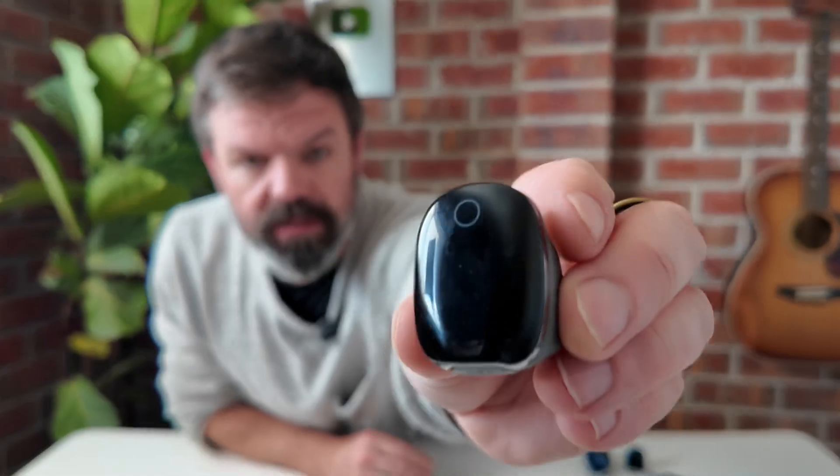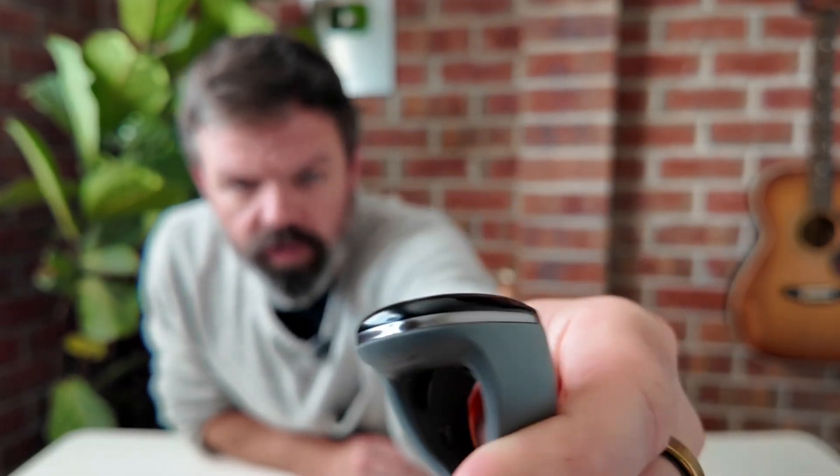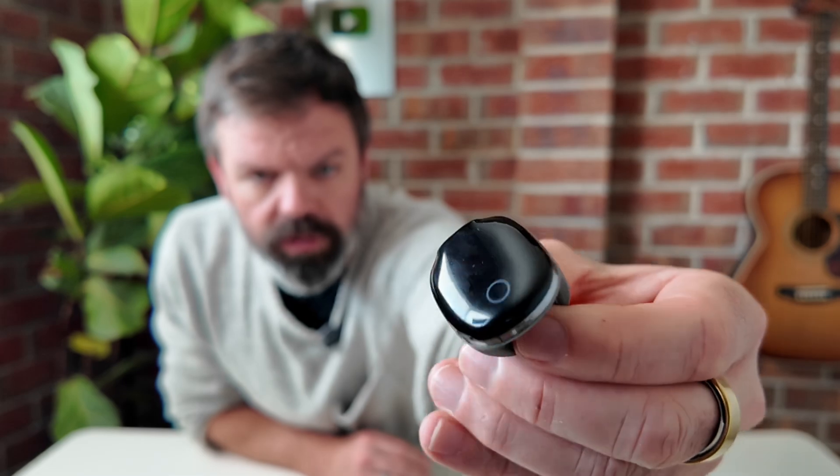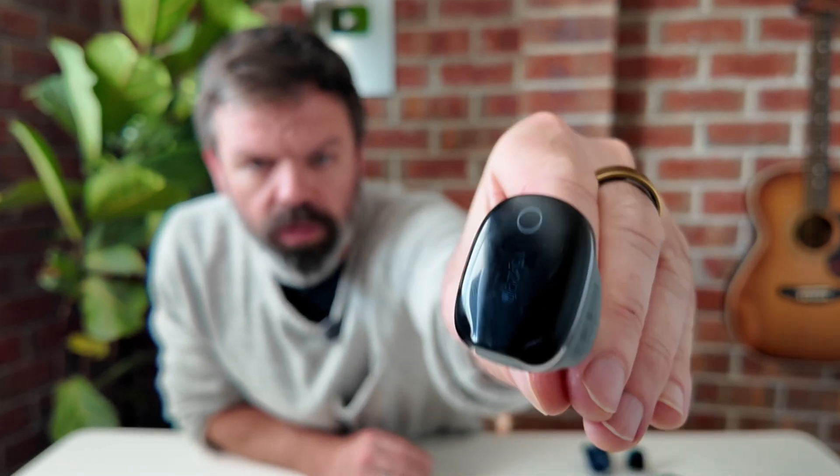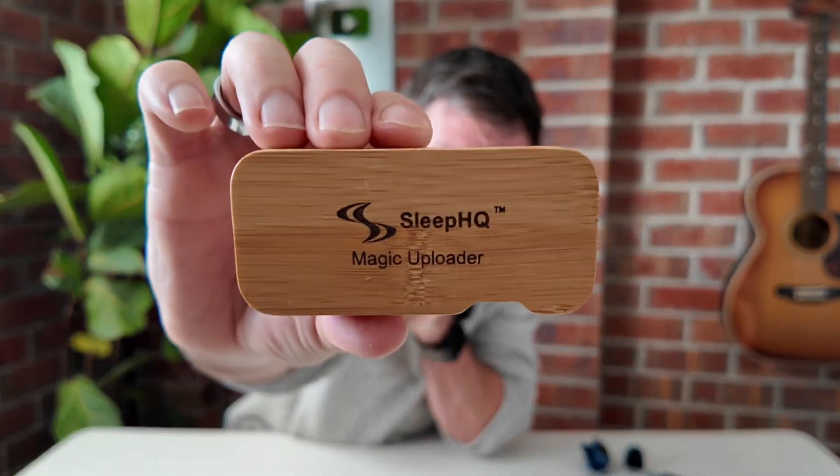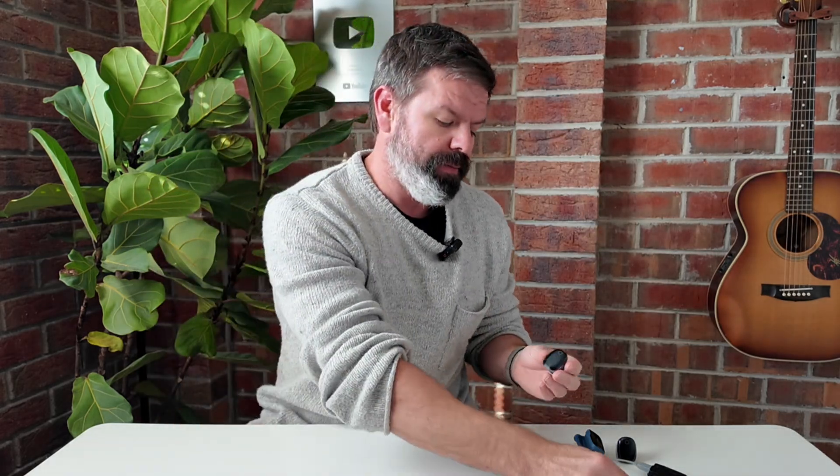However, when it comes to this one, this is the latest one. You see, it's got the silver little band. We call it the Sleep HQ O2 Ring Pro. This one has custom firmware for Sleep HQ for connecting up with the Magic Uploader. Now, some Sleep HQ members, they have this Magic Uploader, and what it does is it syncs all your O2 Ring data, all your CPAP data, just streams it all up to Sleep HQ. So you never have to do a manual upload. And because of that, we've got some custom firmware. So if you want to use this device, it has to be the Sleep HQ O2 Ring Pro. If you buy it somewhere else, it won't work.